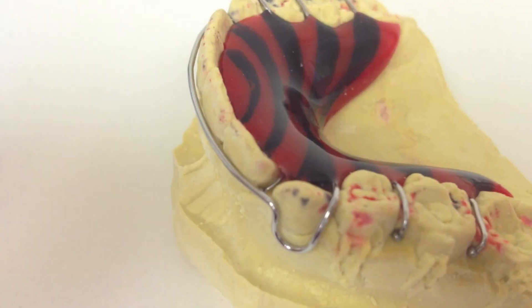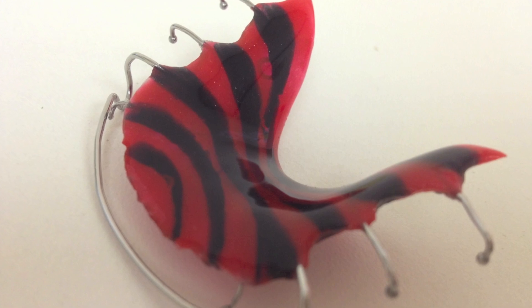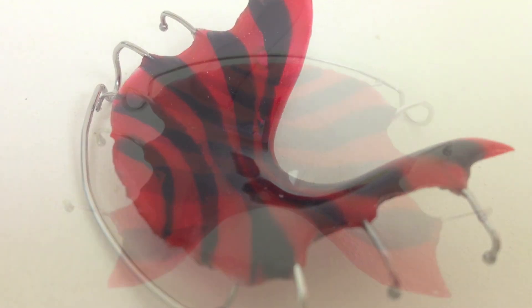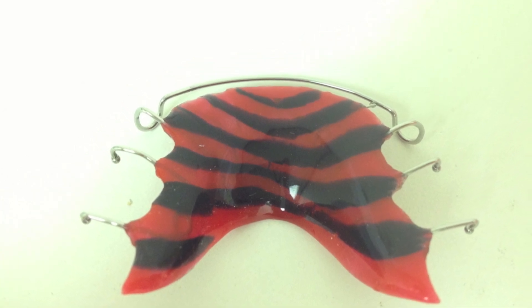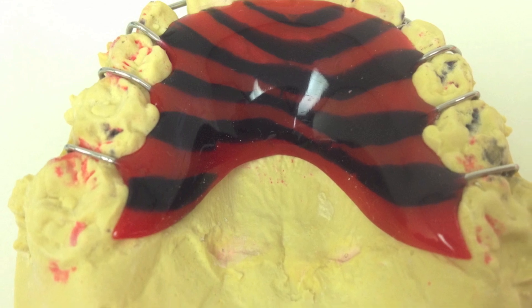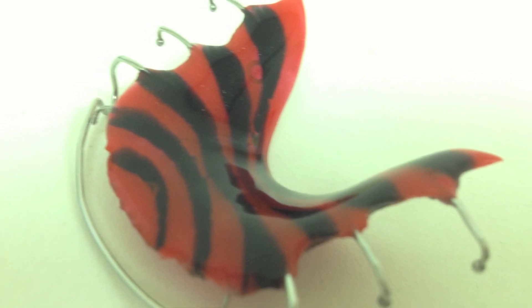Finishing up — here's the finished product. You'll notice a little bit of stone on the surface; I took these pictures before I cleaned it. But it's a great pattern, one step, and it only takes a few minutes extra compared to doing one color, and you get to charge more for it. If you have any questions, feel free to email me at retainerdesigner.com.